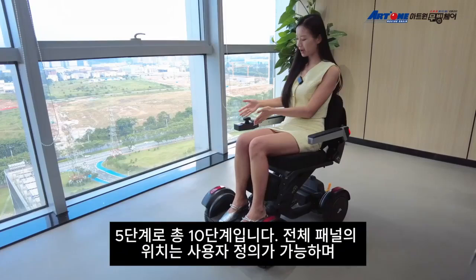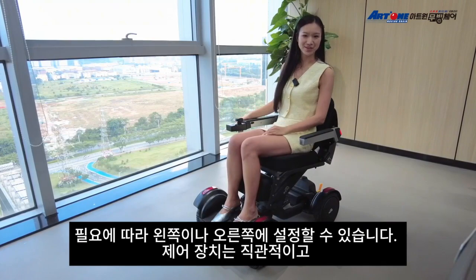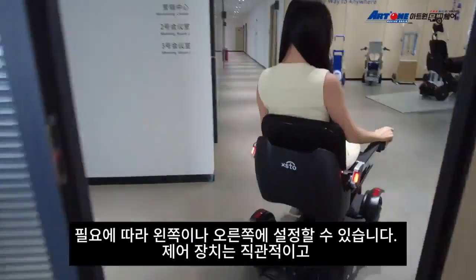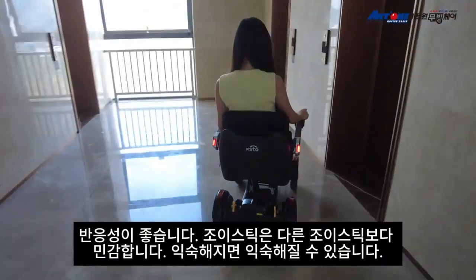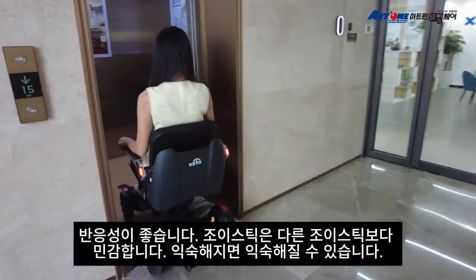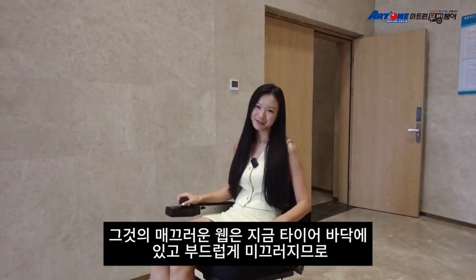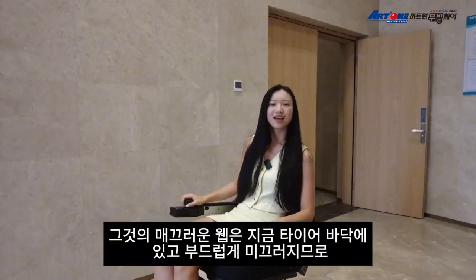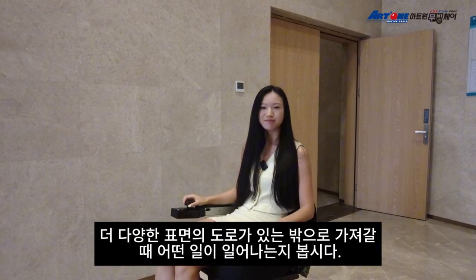The position of the whole panel is customizable — it can be set on the left or right side based on your needs. The controls are intuitive and responsive. The joystick is more sensitive than others you might be used to, but once you get the hang of it, it's smooth sailing from there. Right now we're on tile floor and it glides smoothly.